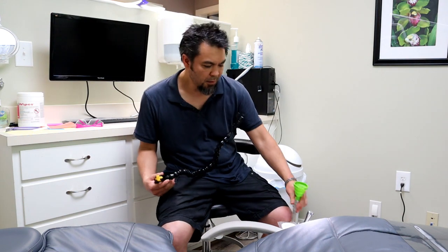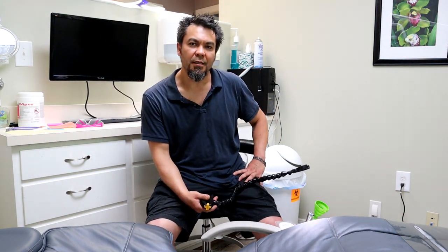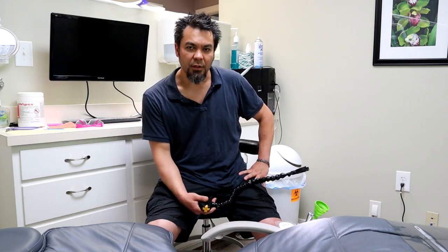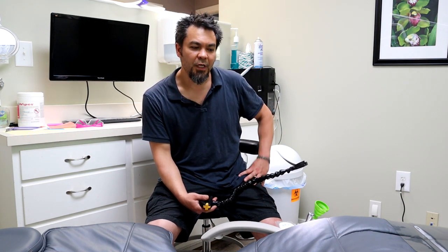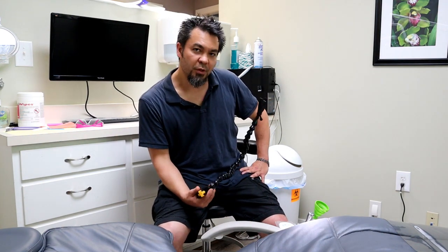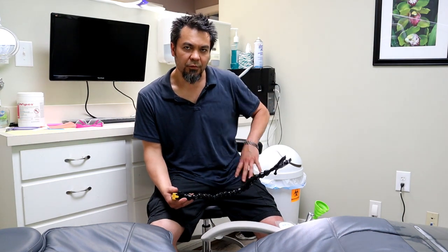Here's one right here. It turns out that dentists are using this device to hold their HVE lines because of the COVID-19 issues. They want to be able to evacuate all the aerosols coming out of somebody's mouth to help stop the spread of COVID-19. In this video we're going to specifically talk about how to use the PLAMP to hold that line and ways to get it to work for your setup.